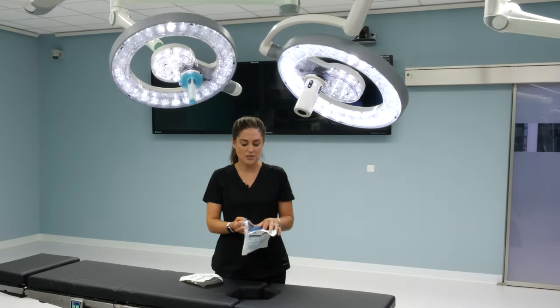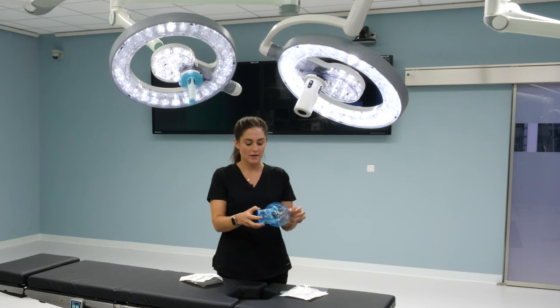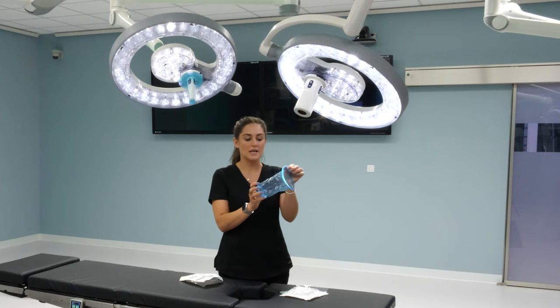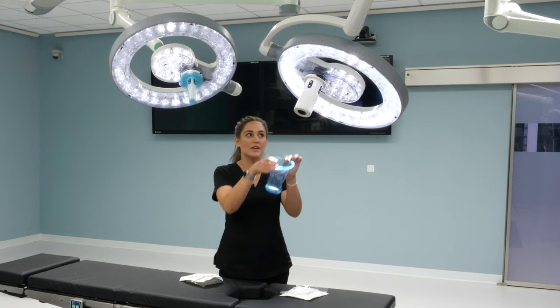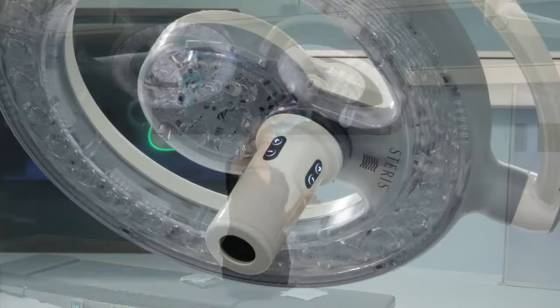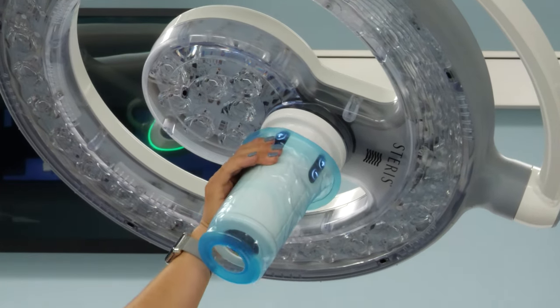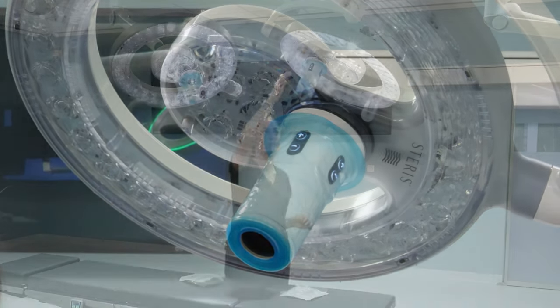This is your sterile camera cover. It's easier to stretch out the cover before sliding it on. Slide up once it's fully extended with a slight twist.